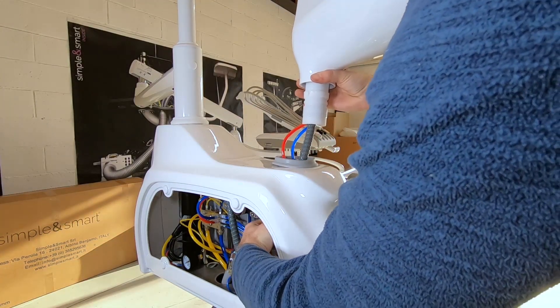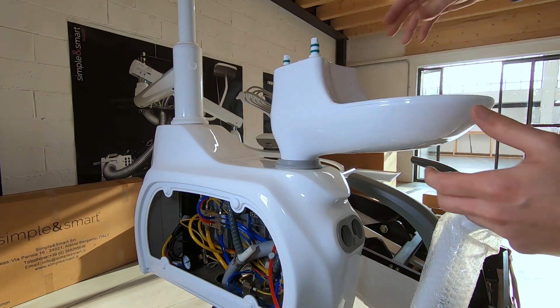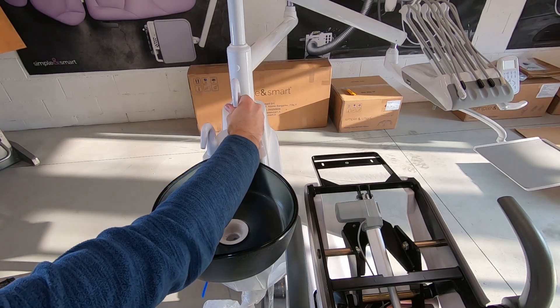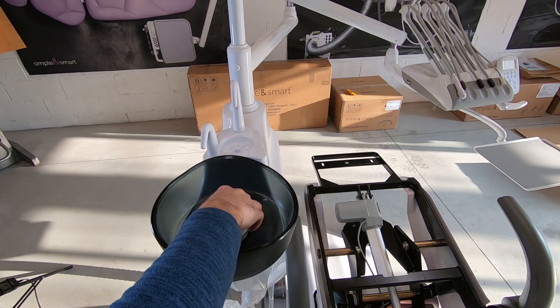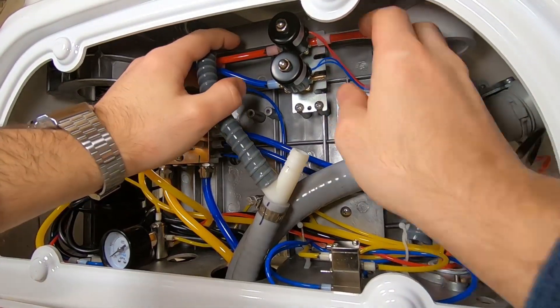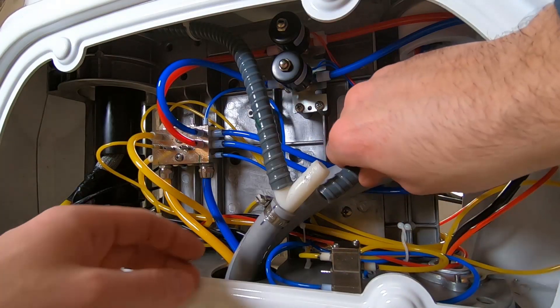The ceramic spiton does not have a silicone ring. Place the spiton on the water unit and place its parts on it: the rinse pipe, the cup filling pipe, the filter and the ceramic tap. Connect the two pipes in the water unit to the solenoid valves, respecting the colors. Connect also the drain pipe.